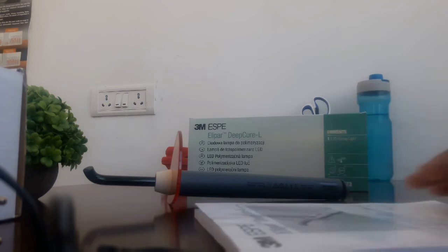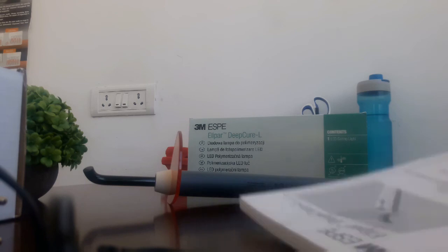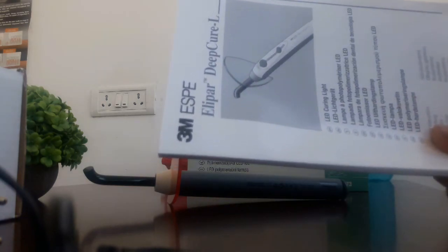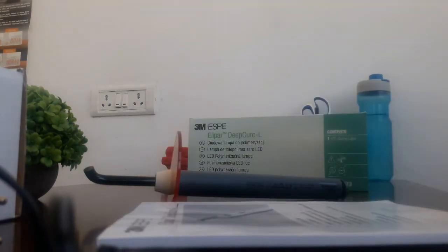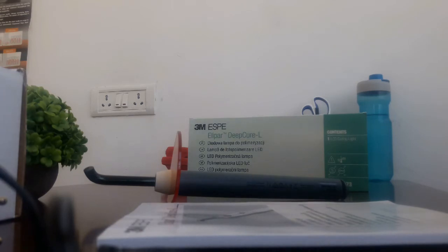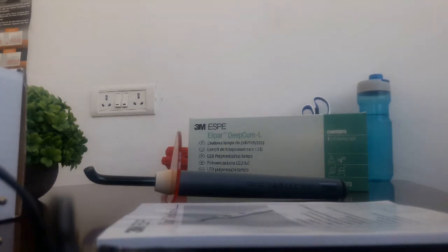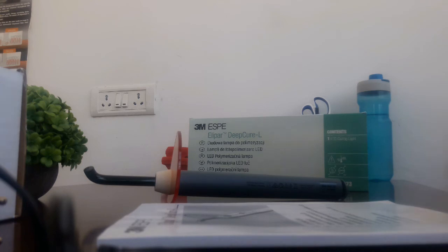This is a high-end product. Again, this will cost you around 50,000 to 60,000 rupees in the Indian market. You can visit Dental Cart for more information.